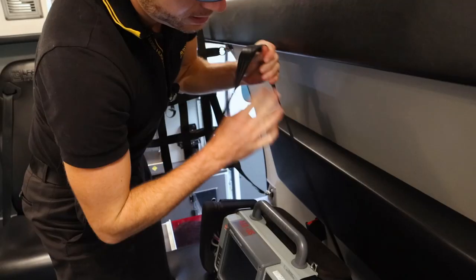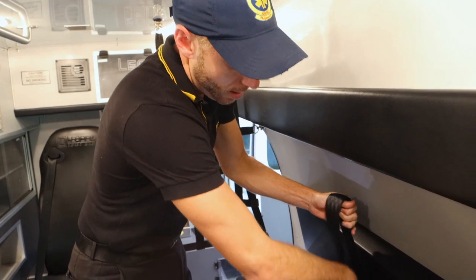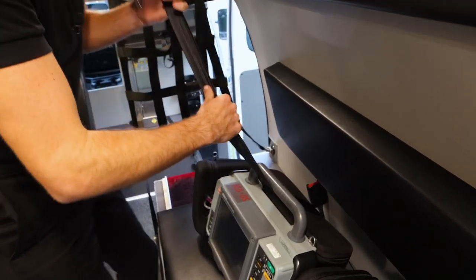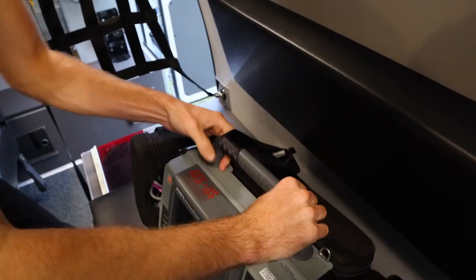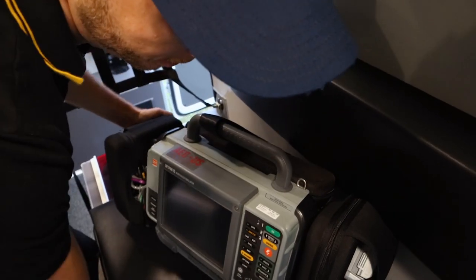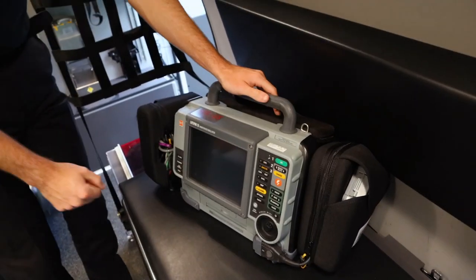Here's my little trick. You take the seatbelt — let's say you're sitting over there and you're secured in. I can move this off like this behind here and hold it taut. I can come back in here and seatbelt in the life pack, so now my life pack is right like this. I'm able to see the life pack and work on it while I'm over here. Pretty cool.